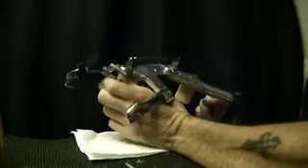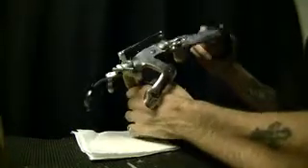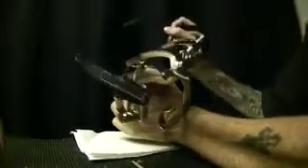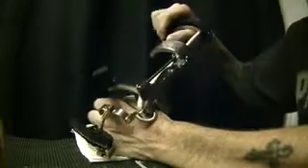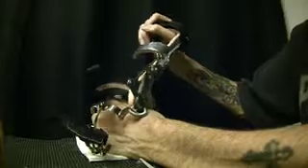This video is about — I don't know what to call it. I guess I call it kind of a claw, but it's a device that allows a quad to pick things up a little easier. Well, a lot easier. I don't use it so often; I've found other ways, but I thought it might be of interest to some people out there, so I'm going to show you how I use it.